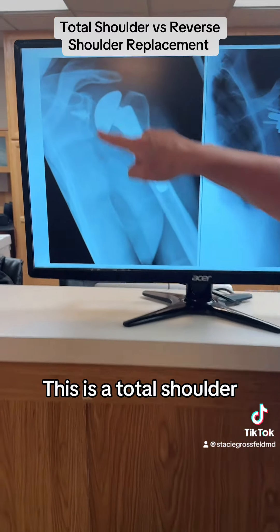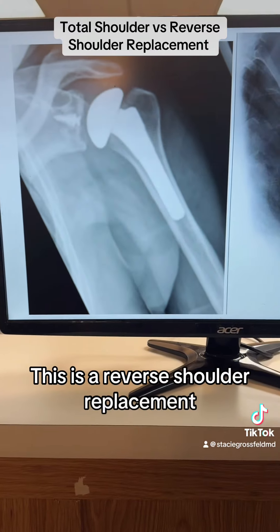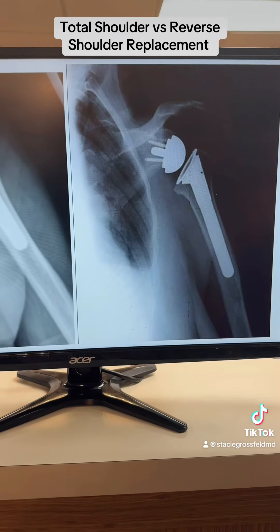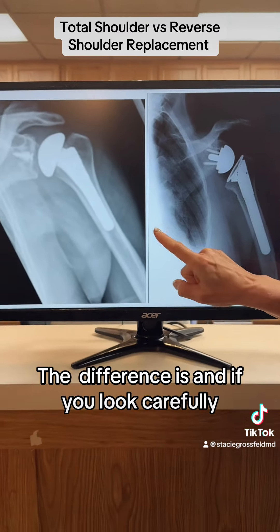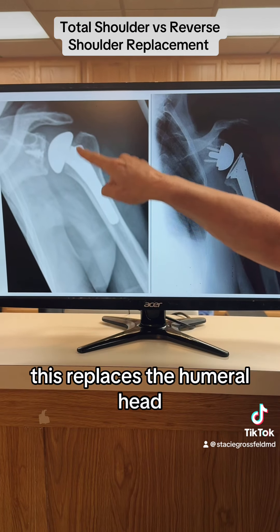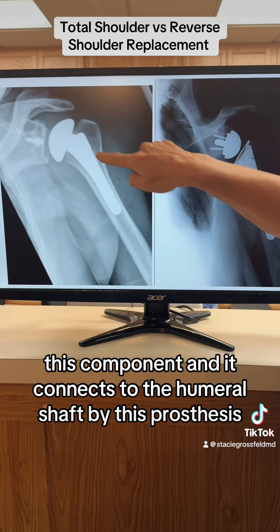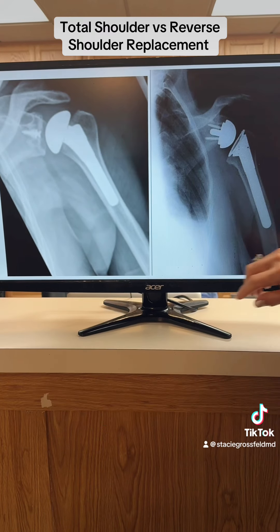This is a total shoulder. This is a reverse shoulder replacement. The difference is, if you look carefully, this replaces the humeral head — this component — and it connects to the humeral shaft by this prosthesis.